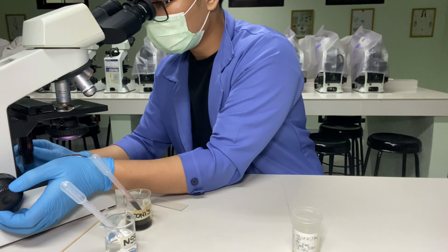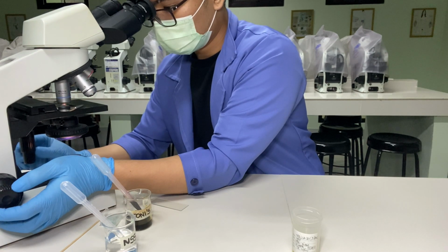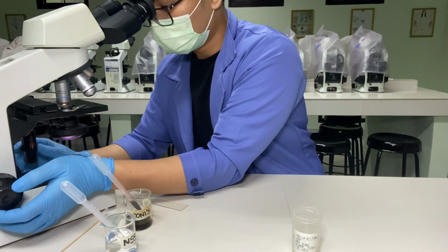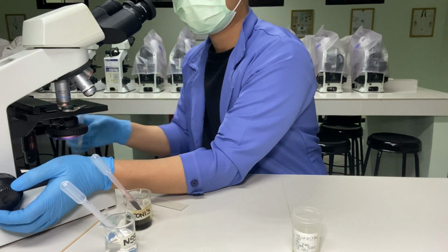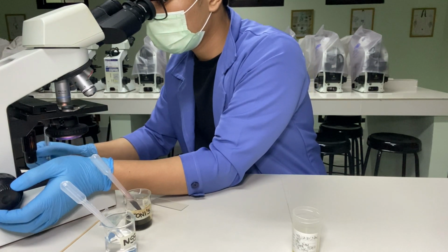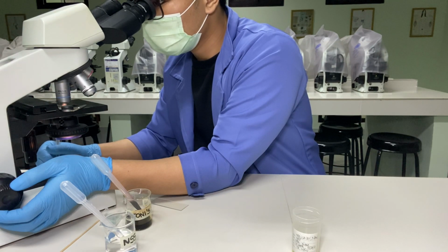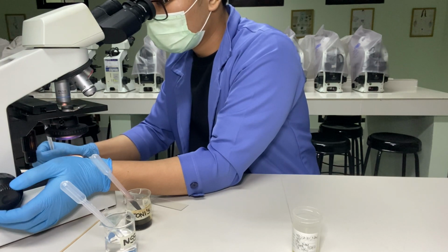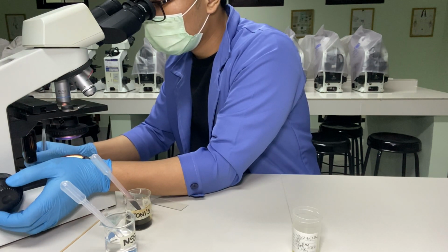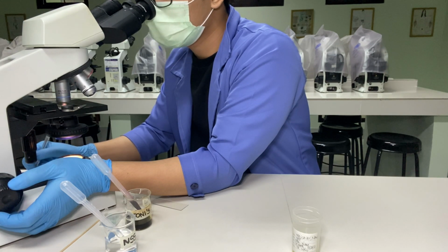For protozoa, a positive result is reported as positive for the name of the protozoa and the stage, and none seen for negative result. Take note, a properly prepared DFS or direct fecal smear will allow ordinary newspaper print to be barely legible through the preparation. Too thick a smear will make microscopic observation difficult, while too thin a smear will make examination unsatisfactory.